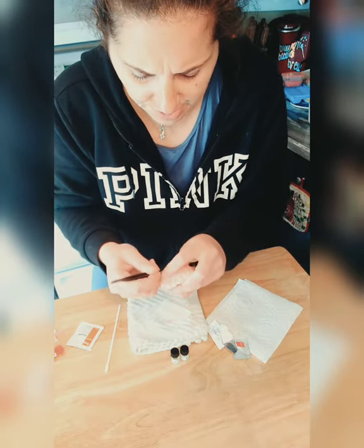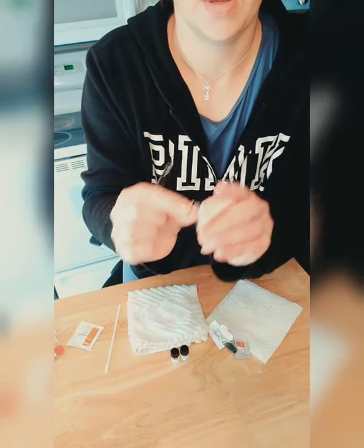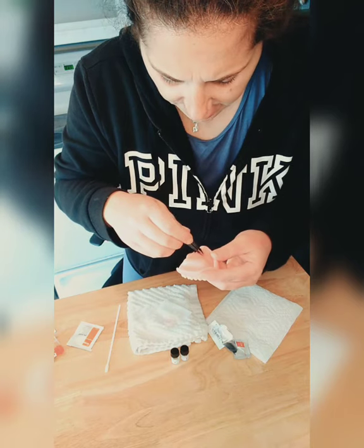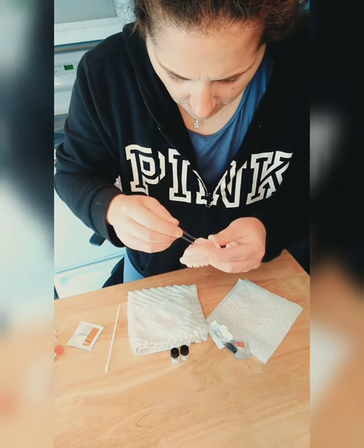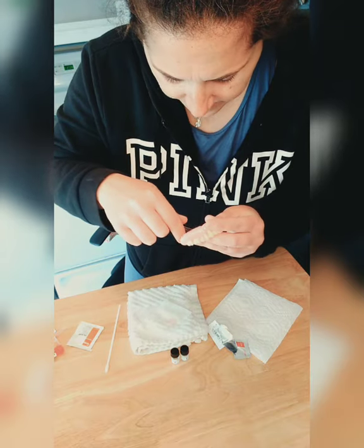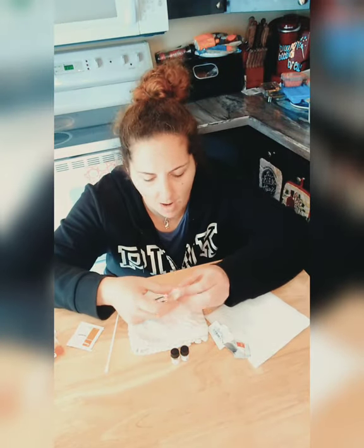Make sure you don't break your denture — always hold it like this and don't apply too much pressure. See, it's lifting — it's coming out. I make sure you guys see it at the right angle. I just rip it out and take it, making sure it's all out except for one spot. It's actually quite easy, and that Unisolve stuff works great — it helps loosen it up.